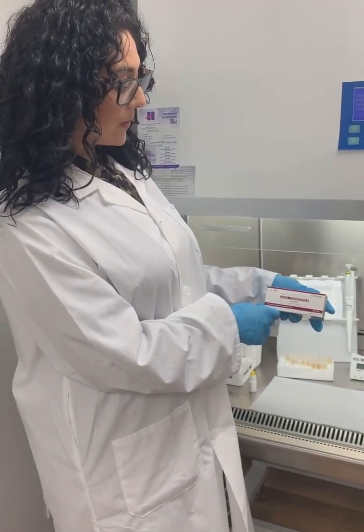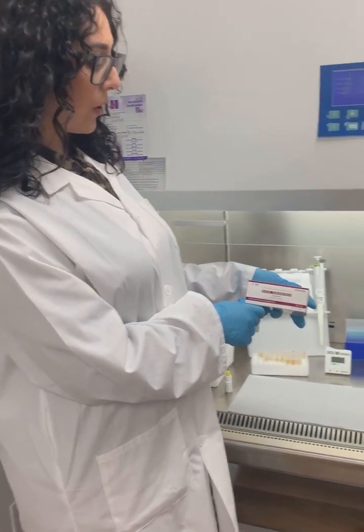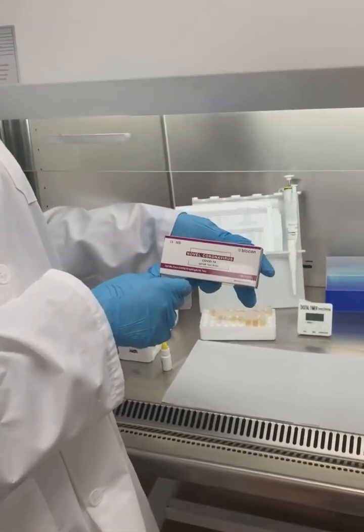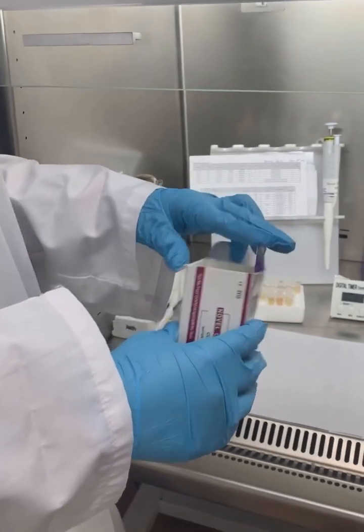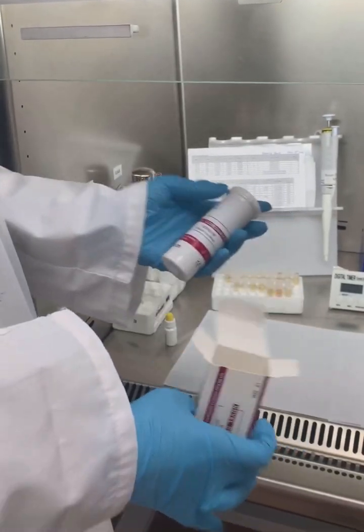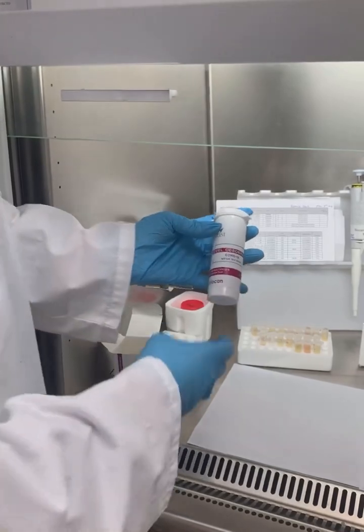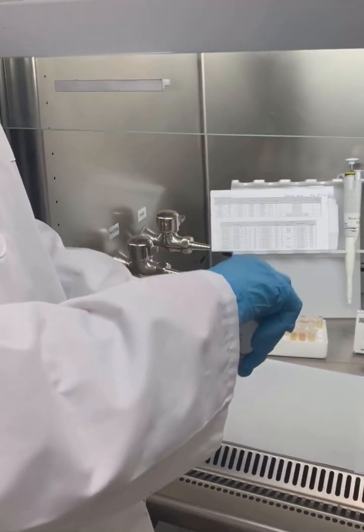We're going to be demonstrating how to do the test with Biocan COVID-19 IgG-IgM antibody test strips. As you can see the tests are packed in a vial with 50 tests per vial.